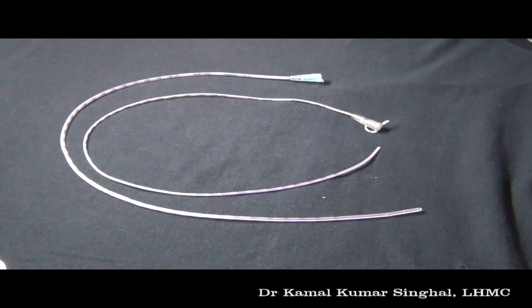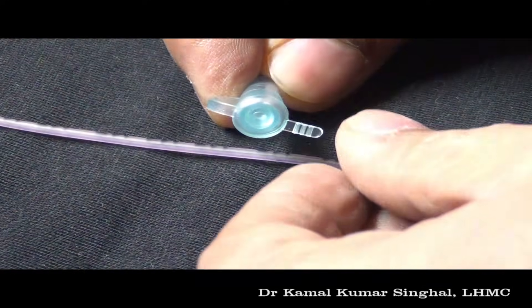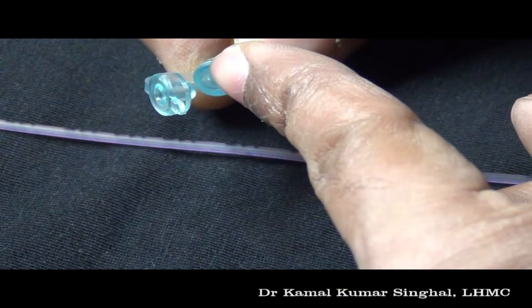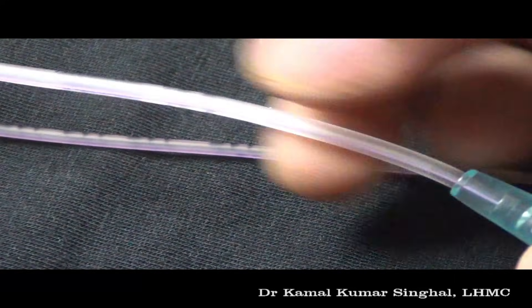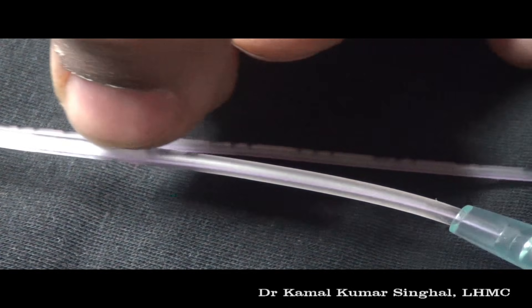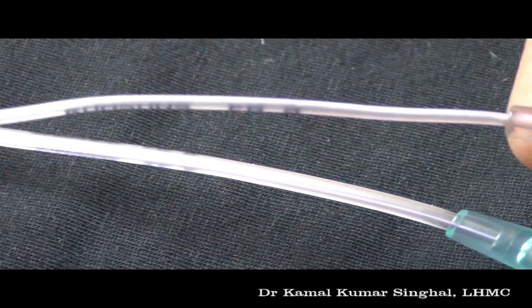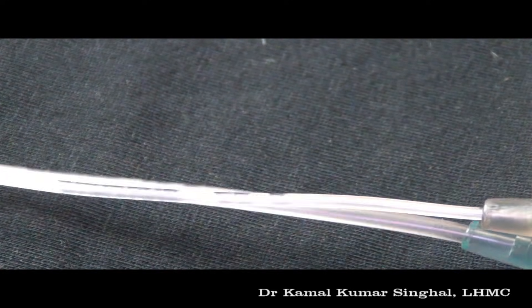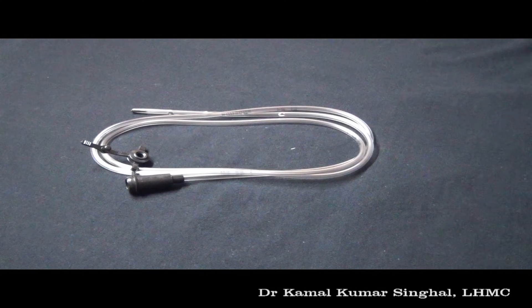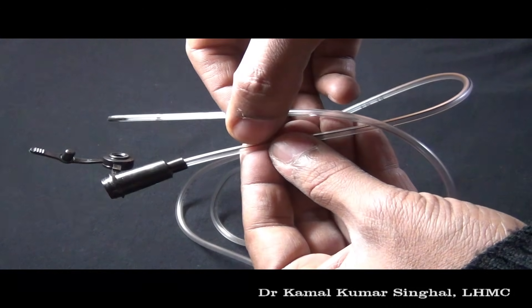These are two different sizes of infant feeding tubes. The feeding is given through this end of the feeding tube, which has a cover that can be closed once the feed has been given. There is a radio-opaque line on the infant feeding tube that helps identify its position on an X-ray. The tips of these infant feeding tubes are rounded. This is a Ryle's feeding tube, which also has a cover at this end, a radio-opaque line, and a rounded tip.